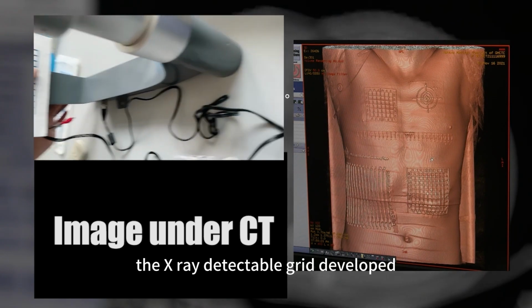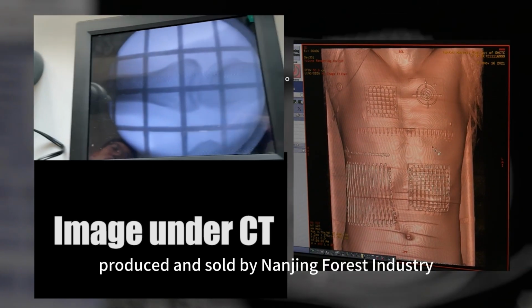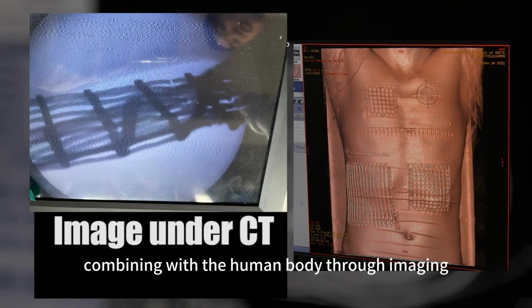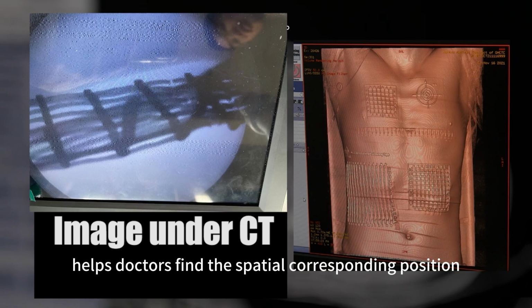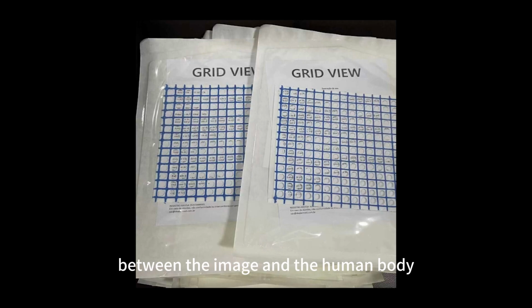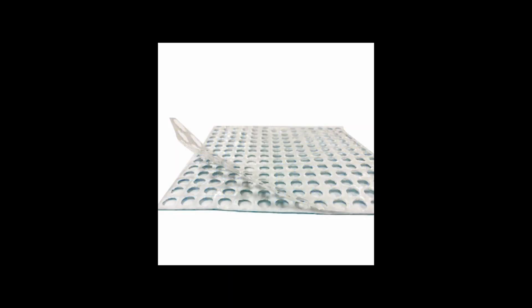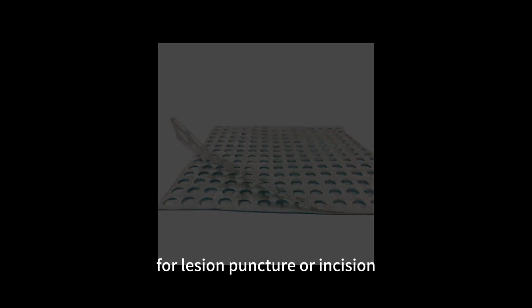The X-ray detectable grid developed, produced, and sold by Nanjing Sengong, combined with the human body through imaging, helps doctors find the spatial corresponding position between the image and the body, and determine the best position for lesion puncture or incision.